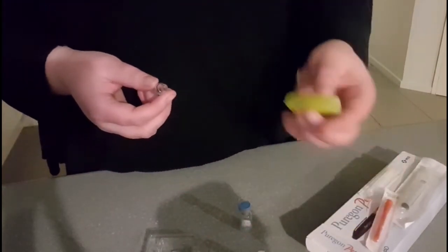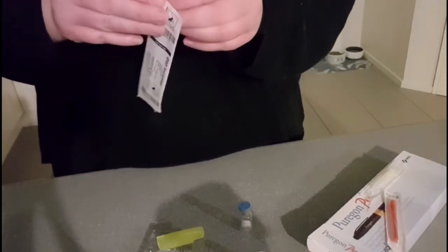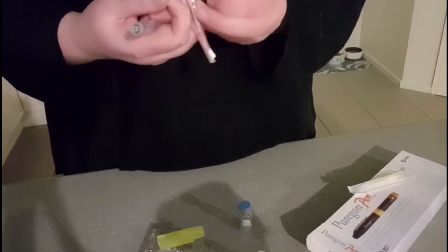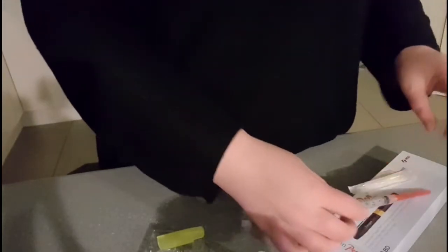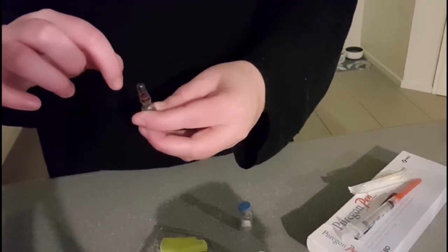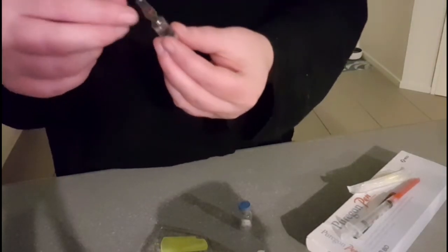Okay, now we want this bit to line up with the blue dot. Okay so we don't do that here — we take the... it'll get easier once we know what we're doing. At the moment I'm just really really lost. So the red one — there — make sure not to touch anything, make sure that's all screwed on, leave the cover on. Okay, we're getting there. Give this a tip to get all of that liquid down — so it's all down there, none left up here. Lucky that I've got these instructions.